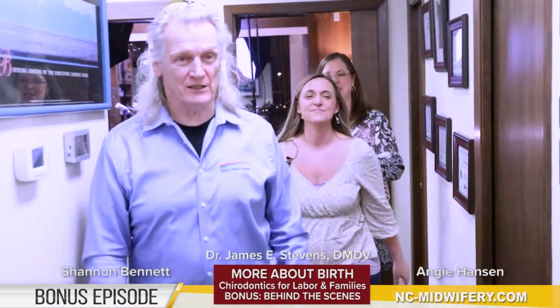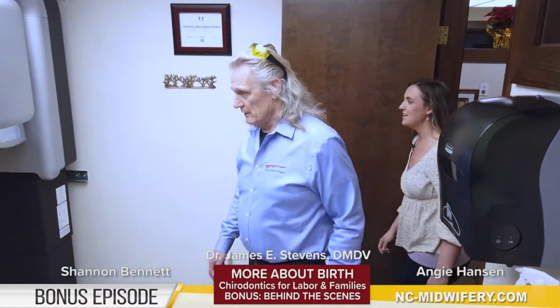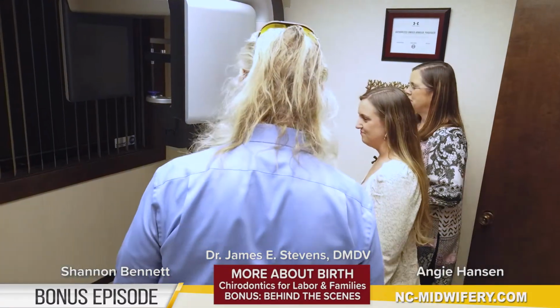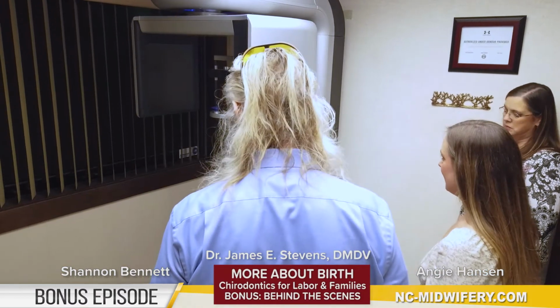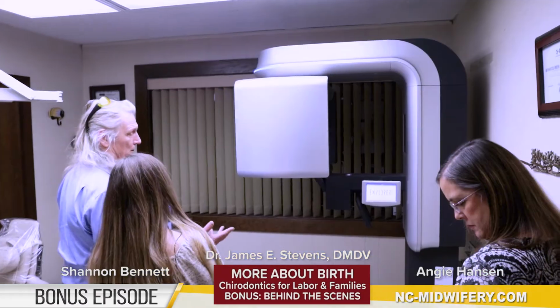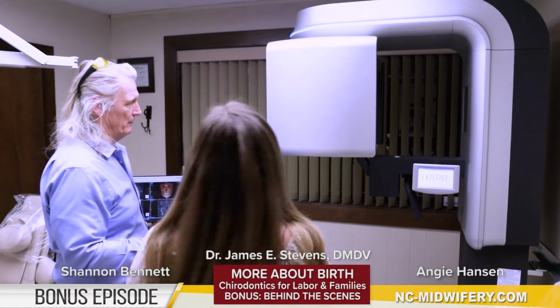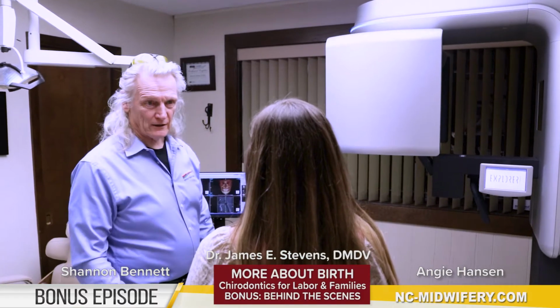Let's do it. CT scan. This is actually the basis of a lot of our diagnostic procedures. It's the spaceship. It does look like a spaceship. This is our CBCT scan, and we can adjust that for any age of patient, any height of patient. I love it. It's a neat scan. It's very low radiation. It takes a 3D image, and the scan takes 10 seconds.